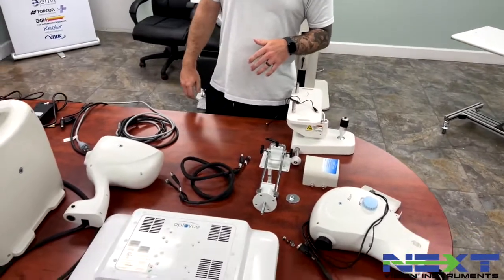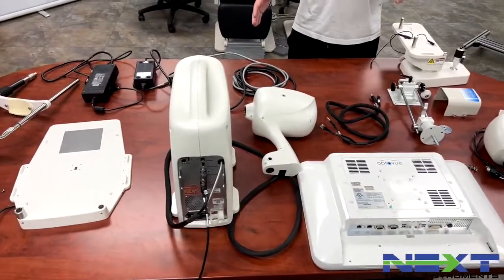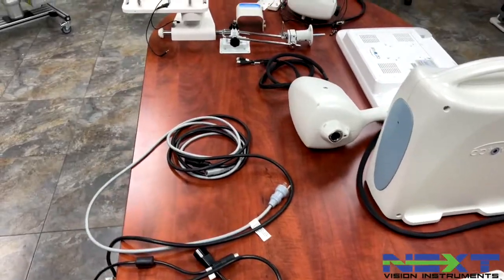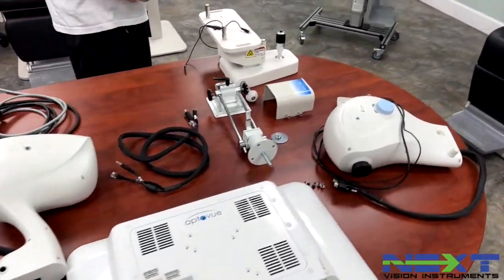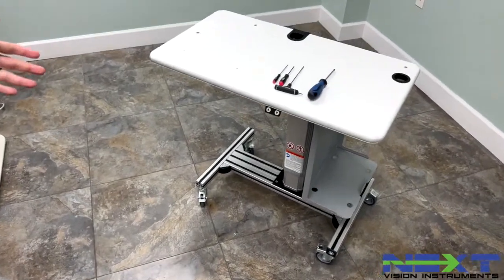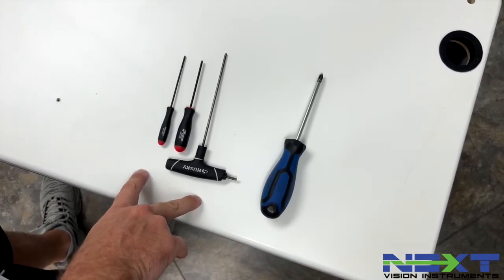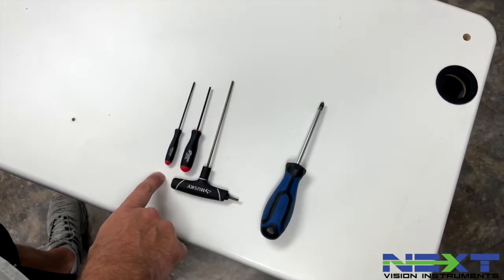Patrick will start to pan. This is what it would look like when you get one of those instruments from us — how it looks when you unpack the box after it has arrived at your facility. All the parts and pieces are laid out on the table. We can't ship it together, so once you unpack the boxes, this is how it will be. In addition to this table — it's a power table — these are the tools you'll need: a Phillips screwdriver and three metric allen wrenches — a three millimeter, a two-and-a-half millimeter, and a two millimeter allen wrench.